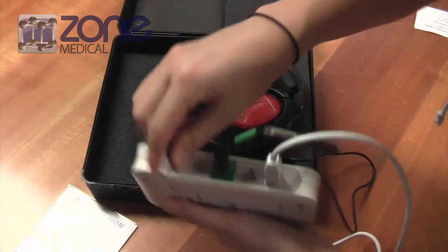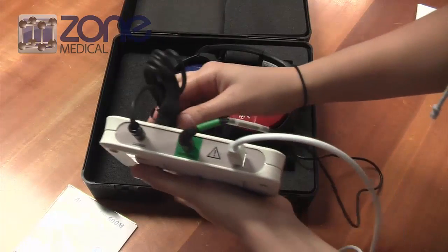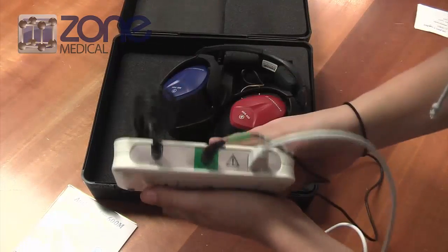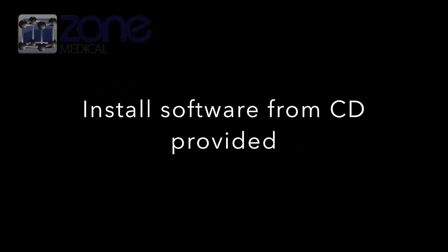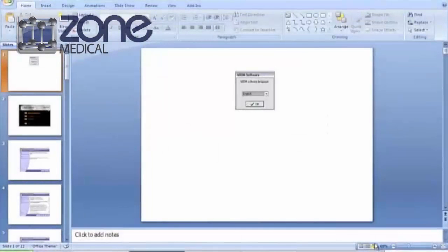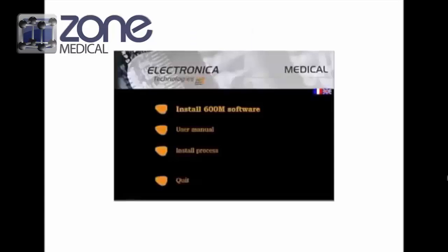Now you are ready to install the CD onto your computer. Once you put the CD in, the first thing that will pop up is the choose a language box. Please choose English and click OK.